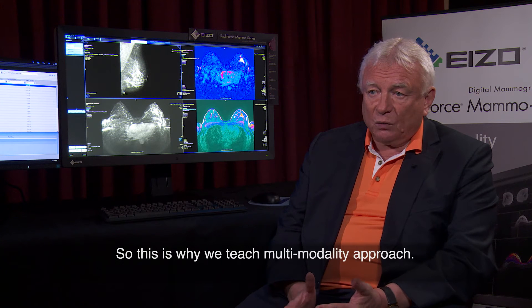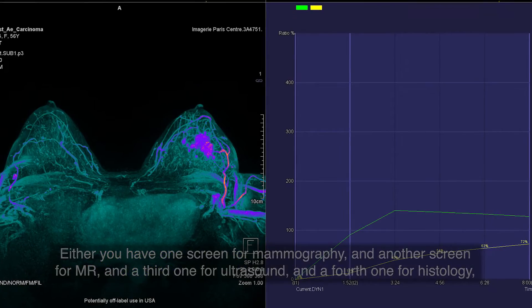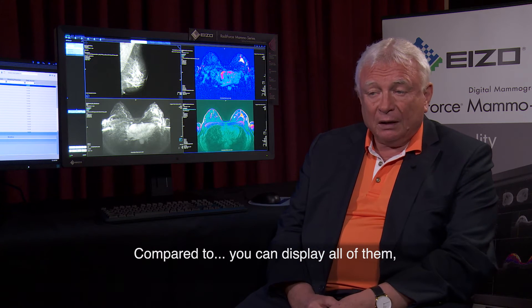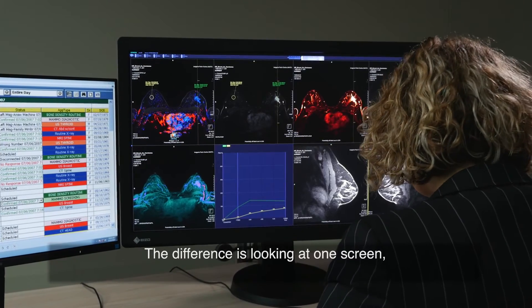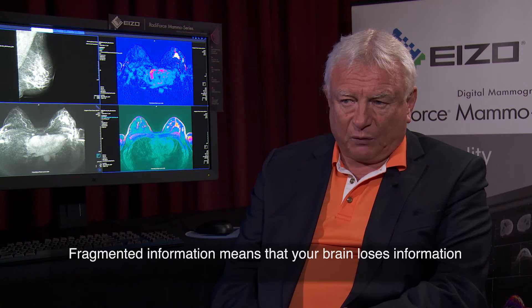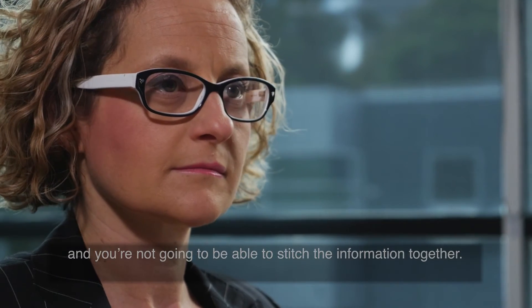So this is why we teach a multi-modality approach. Either you have one screen for mammography and another for MR and a third for ultrasound and a fourth for histology, and the poor radiologist is running around in the same room. Compared to that, you can display all of them — especially for teaching purposes — on one single screen. The difference is looking at one screen versus fragmented information. Fragmented information means that your brain loses information when you go from one screen to another and to a third and a fourth, and you're not going to be able to stitch the information together. One screen does.